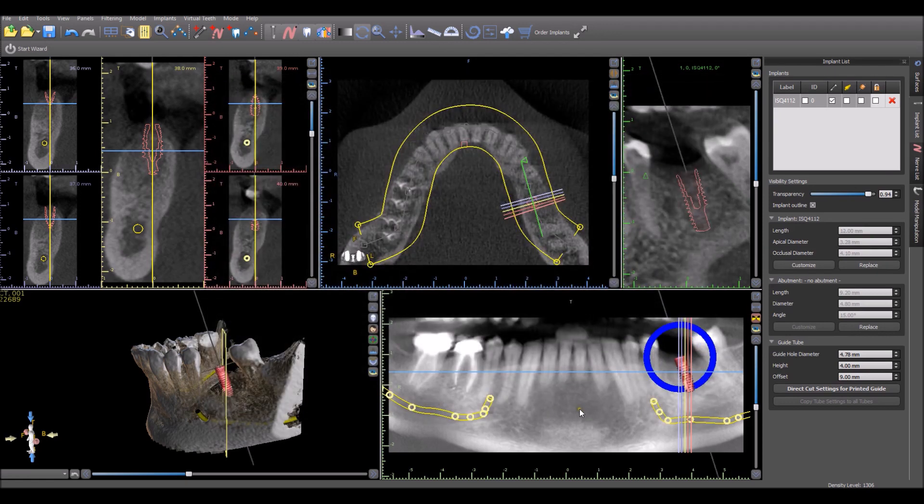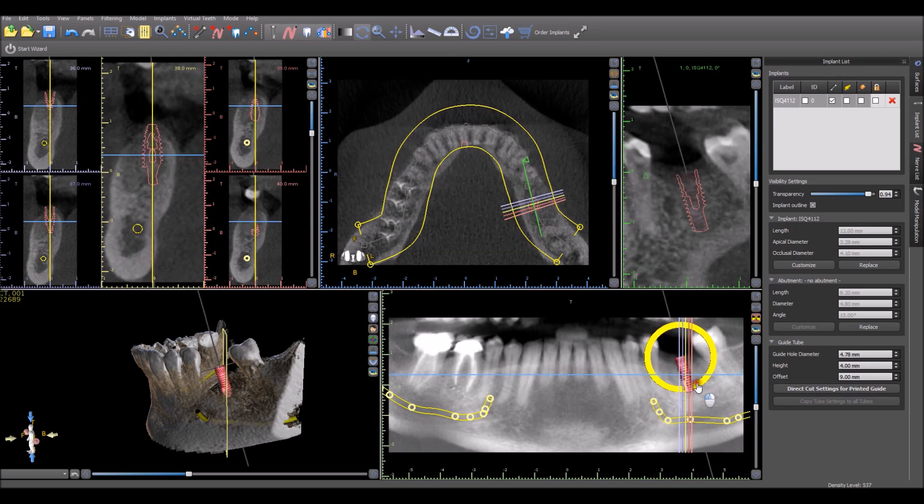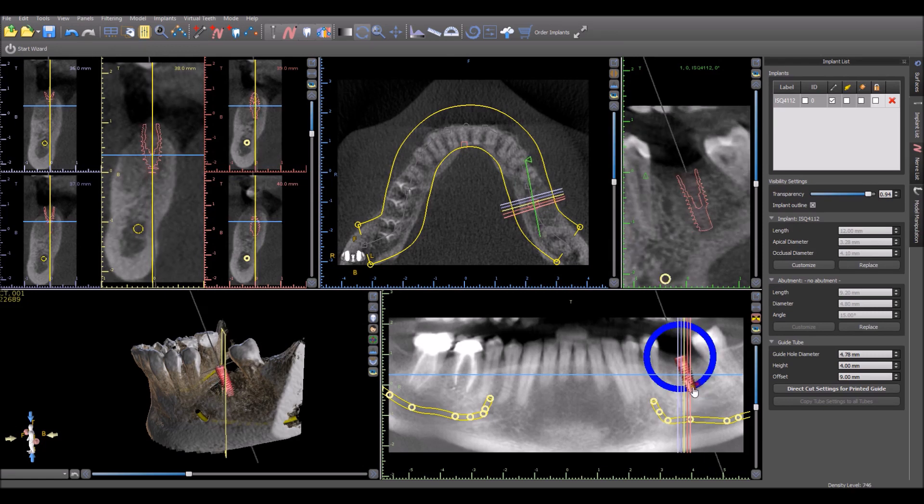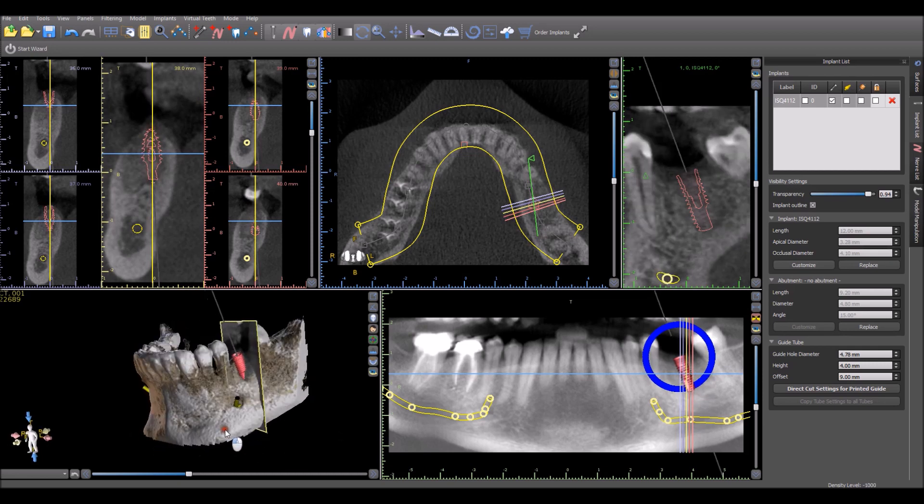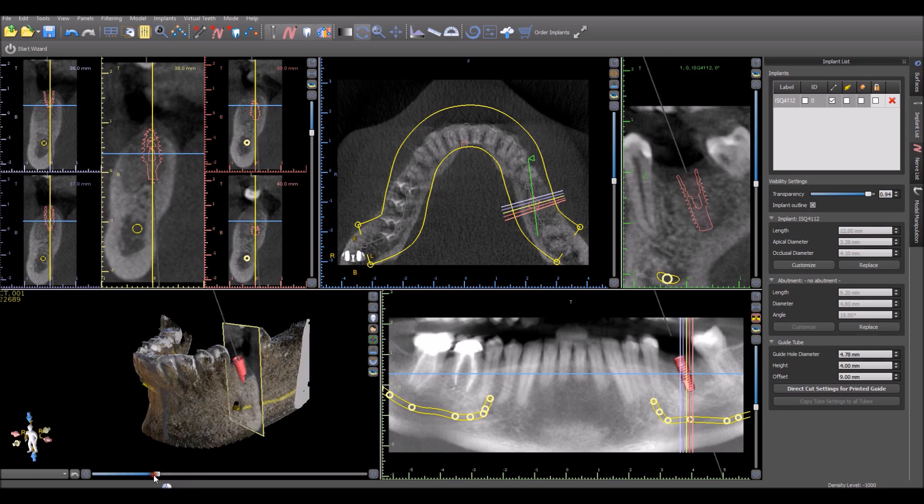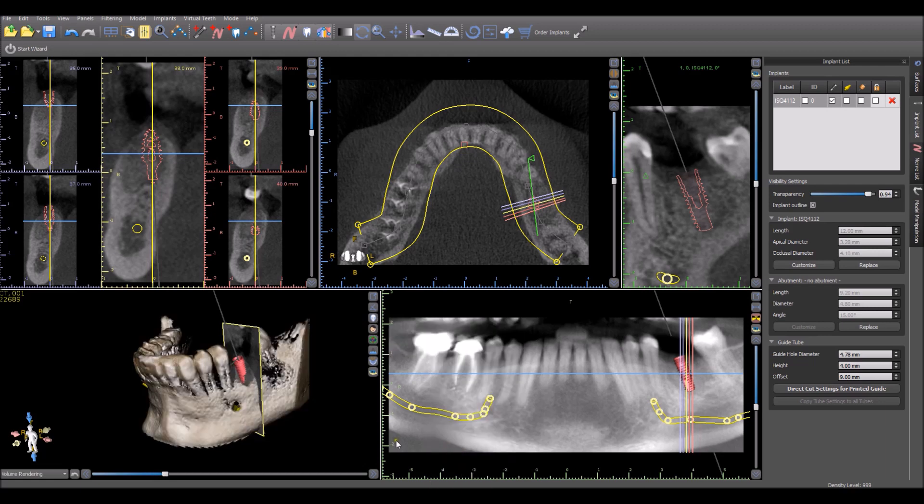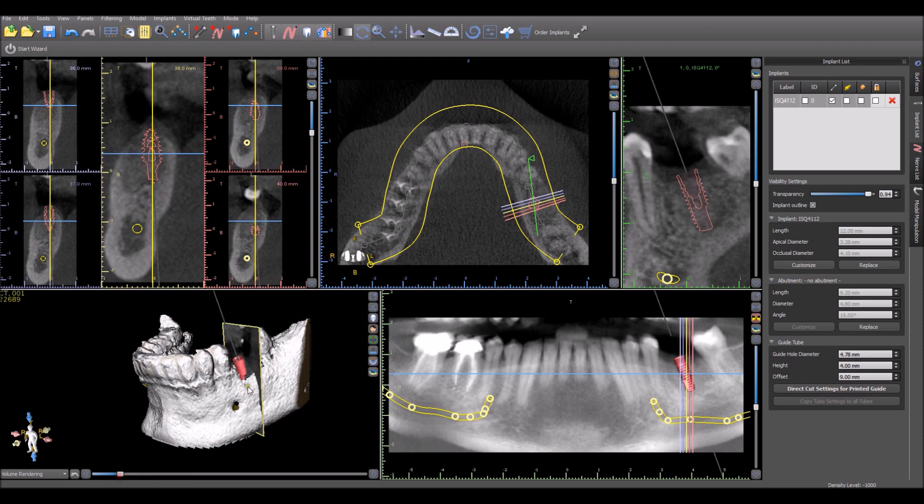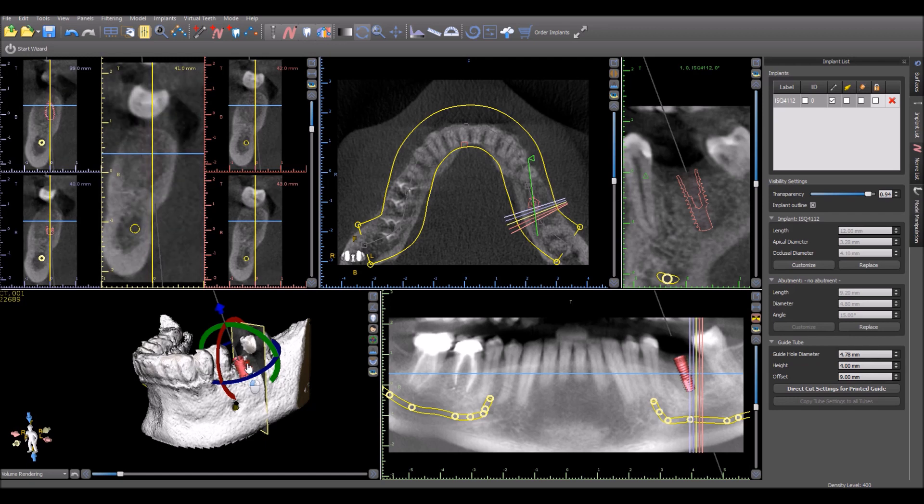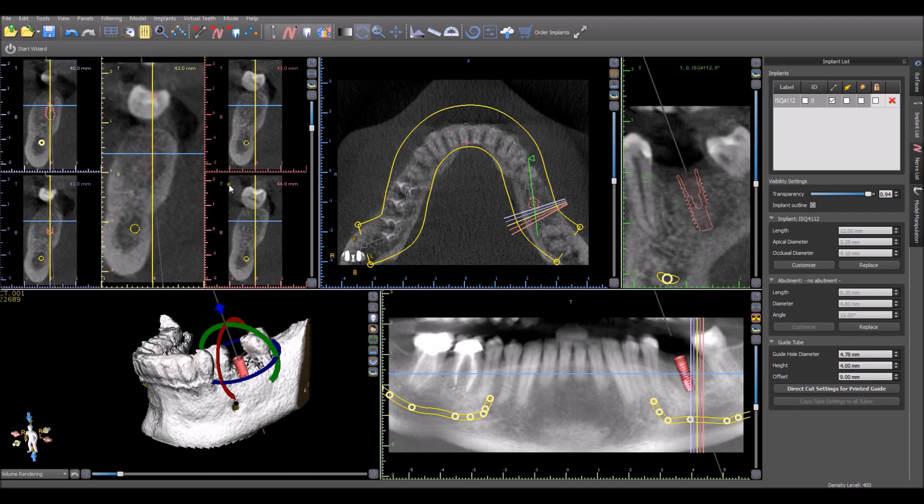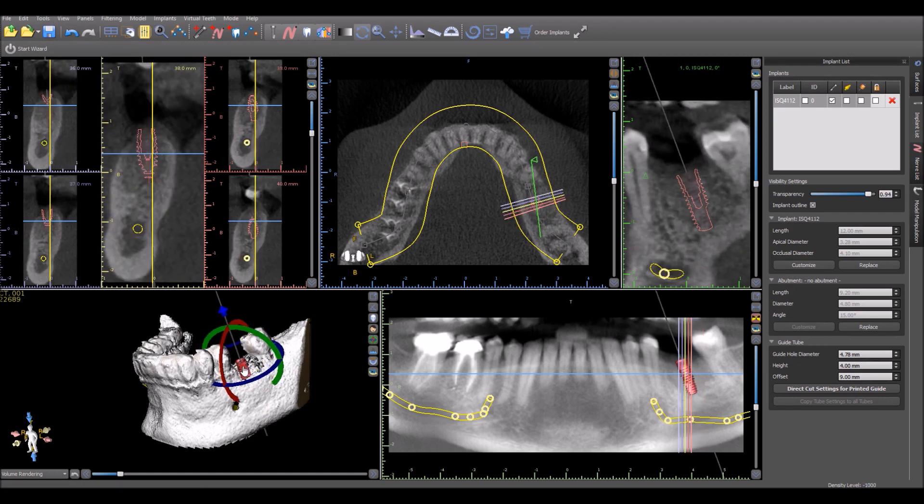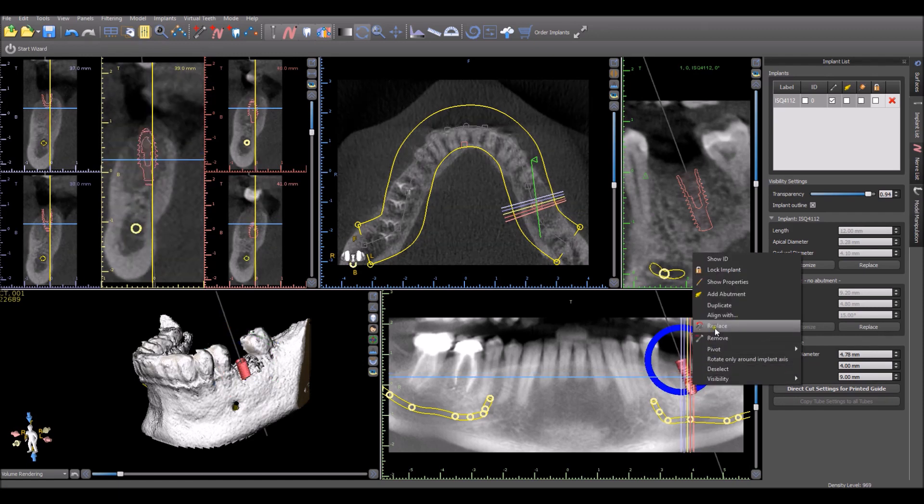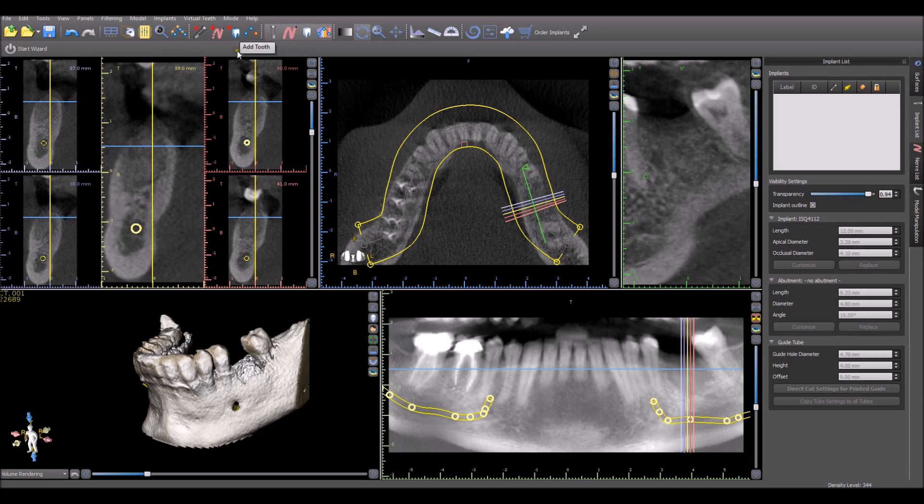And this definitely isn't meant to be a clinically accurate video. We're just looking at the functionality, primarily at the functionality of the software. Okay, let's say that's our proper positioning. And here we have the implant. We could check if it's in the bone. Lower the density threshold. Maybe we should sink that a bit deeper. Let's turn off that projection. And we could go ahead and grab and drag the implant. Another way of treatment planning—let me just right-click here and delete it.